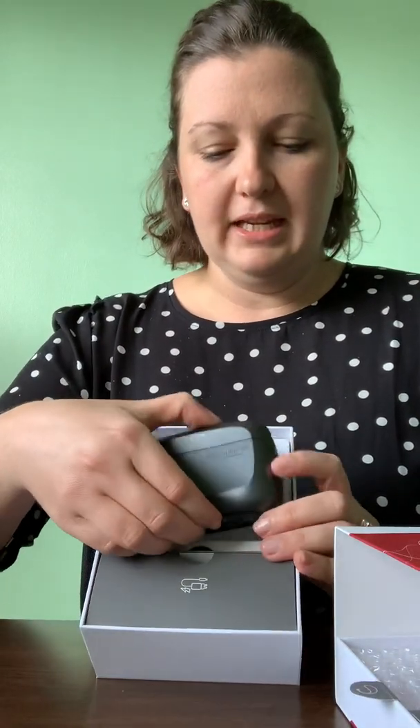The new devices come in both traditional batteries and rechargeable, and have a couple of different charger options. I am planning to do premium chargers for all of my patients. They have an option of a charger that just charges — it doesn't hold backup charges — and while that's fine for an extra or a spare, I want folks to have the backup charges available. The charger holds three charges, so when the power's out — and it's hurricane season now that we're doing this launch — you're not off the air in the time of an emergency.